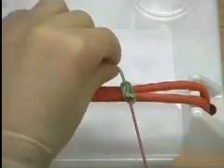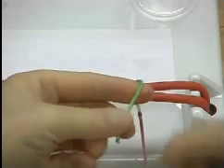The knot has to be completed with a square knot, if knot stability is to be achieved.